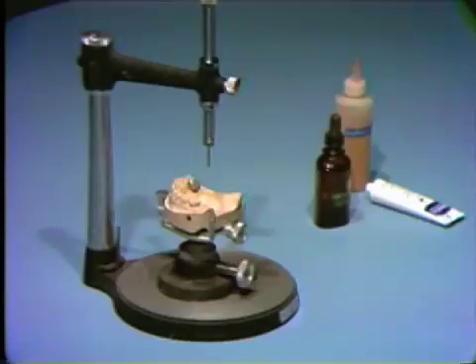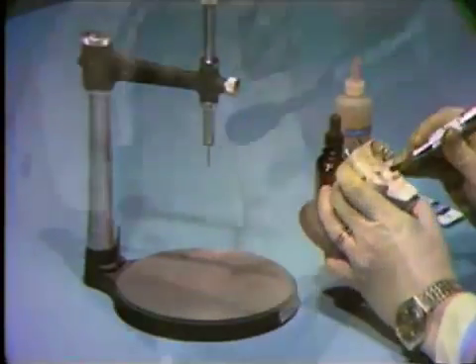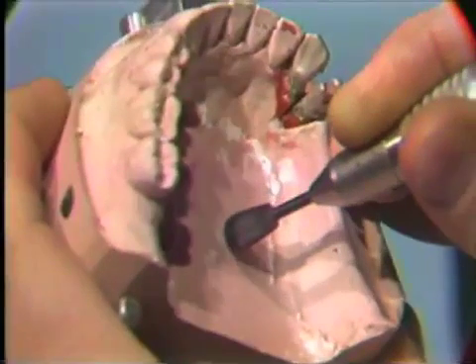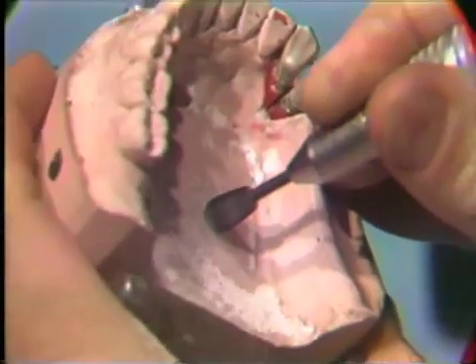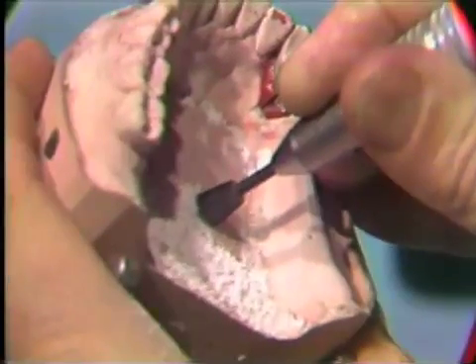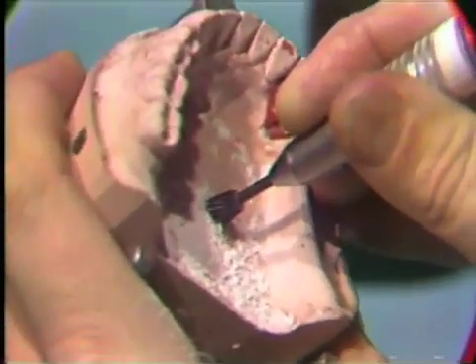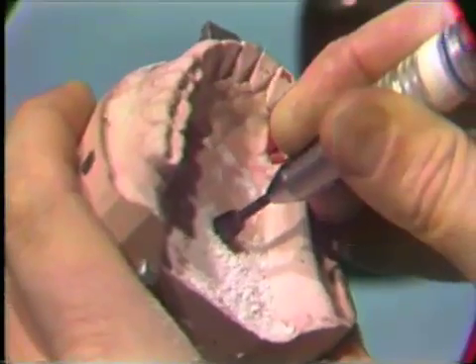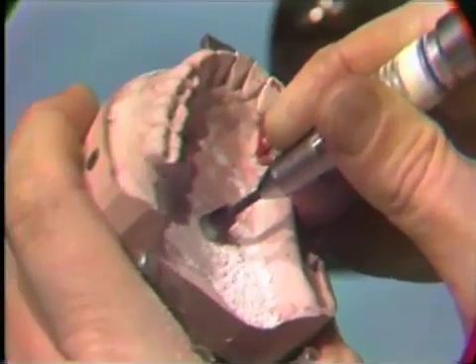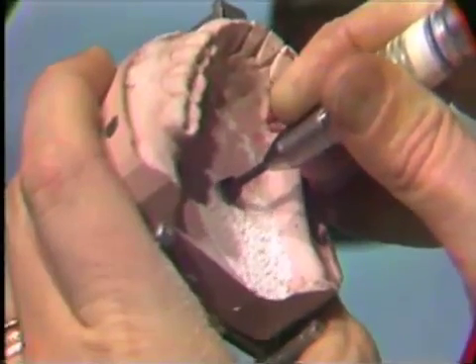Another method is to use a permanently secured metal rod in the base of the cast. With the cast still mounted in the correct position on the cast holder, drill a hole in the middle of the oral side of the base of the cast with a pear-shaped acrylic burr. This hole should be the full width of the burr, about 10 millimeters deep, and should be slightly undercut by rotating the burr in the base of the cast.